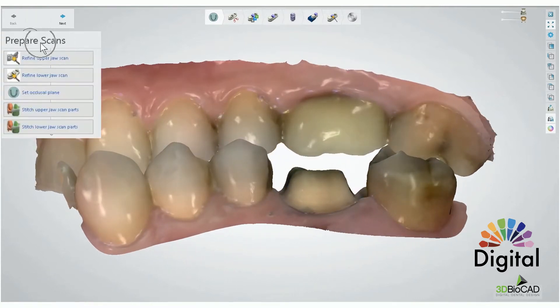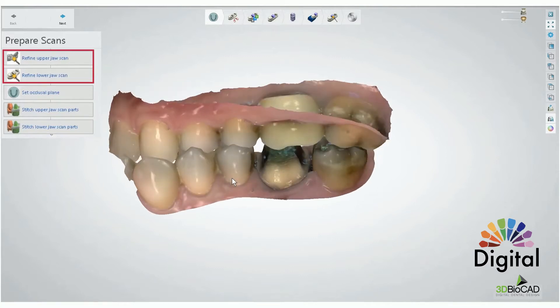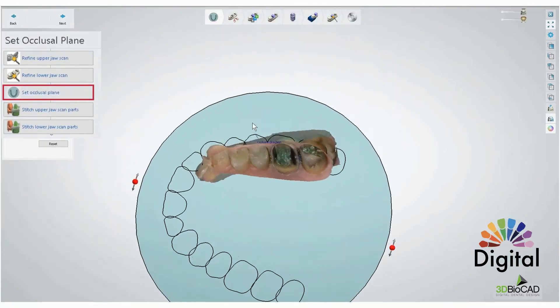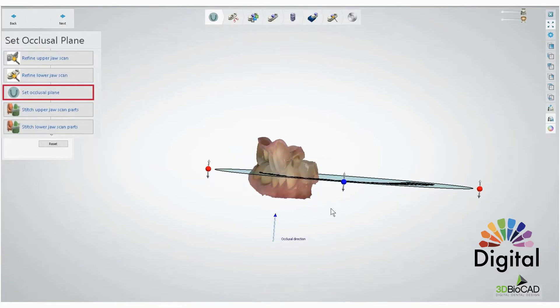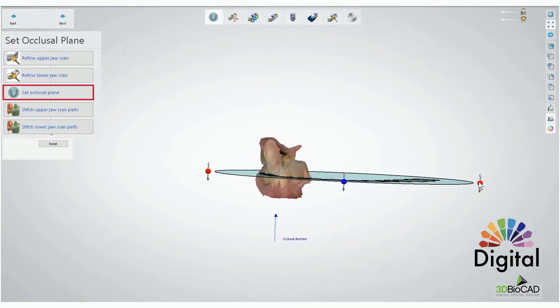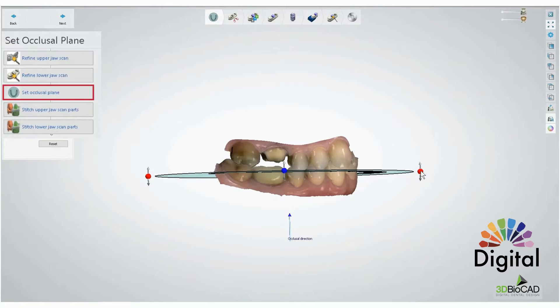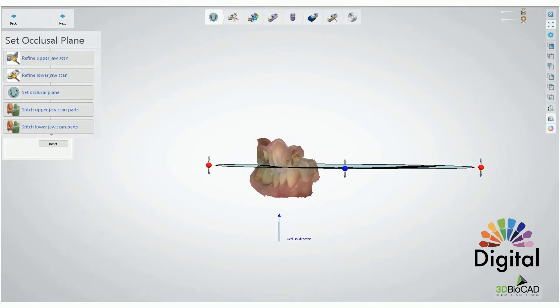We're still in the Prepare Scan step — always start with Prepare, Refine Upper, and Refine Lower. This tool we can use whenever we have some issue with our scan file; if there's no issue, we don't have to. Set Occlusion Plane — please click this and do it. We did this job in crown design before. The reason it's important is the model base will follow this occlusion plane angle, so if you have a bad angle your model base is going to be ugly. We want to make it flat and match to the occlusion plane. We can go next.